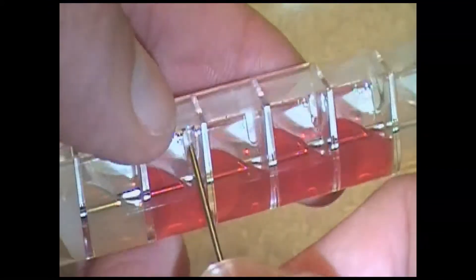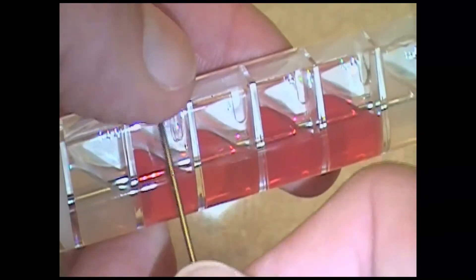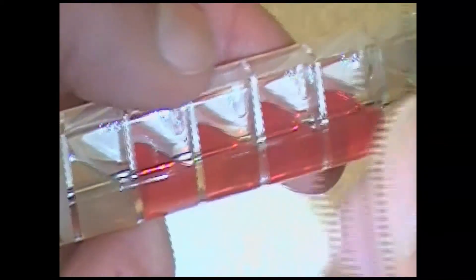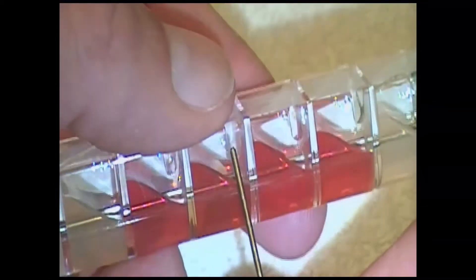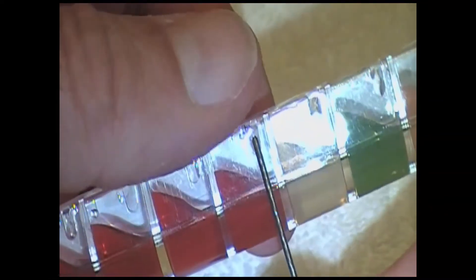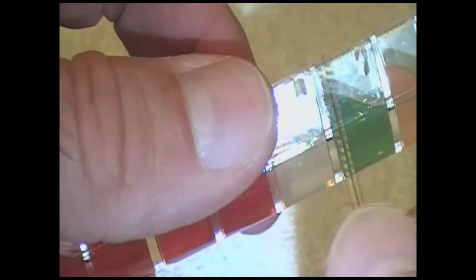That will allow oxygen in to be able to aerate that compartment. Then you start here, and you go down the line. You do each one like that to perforate them. You lay it here, put your finger on top of it, and lift it up. It will perforate them all the way down.